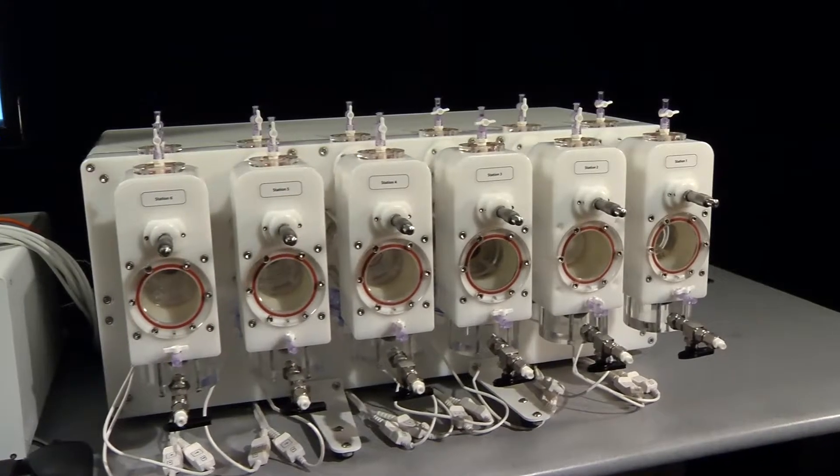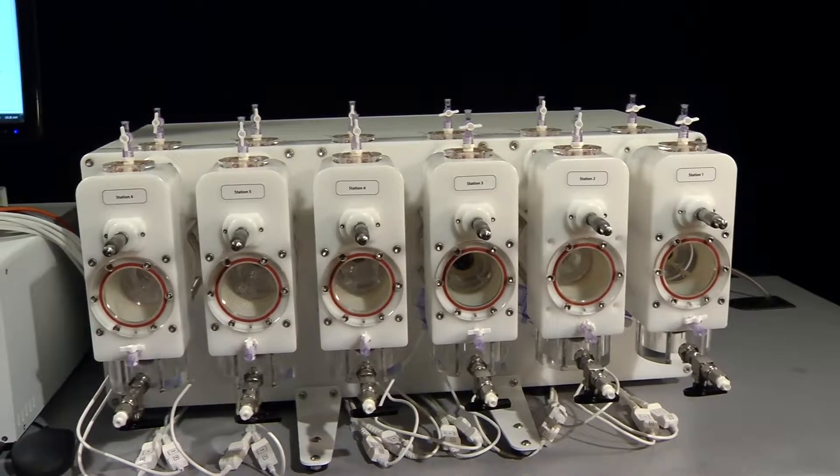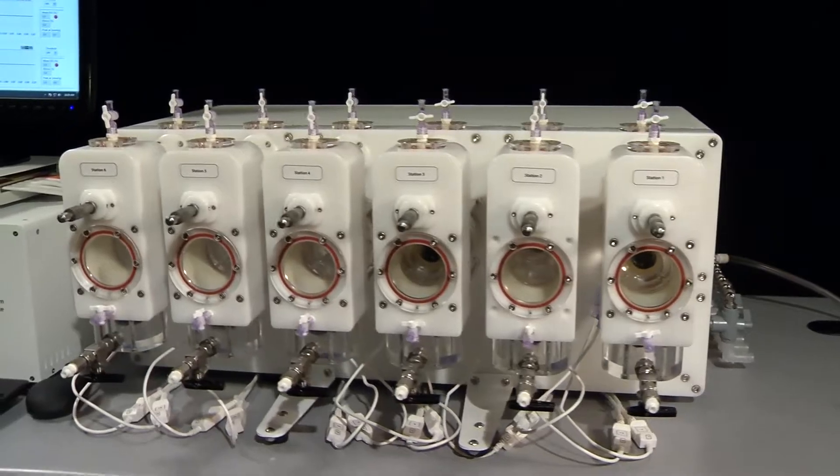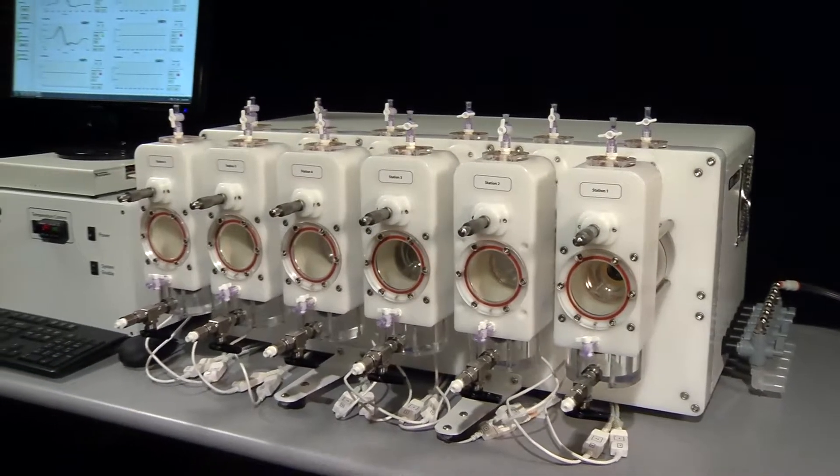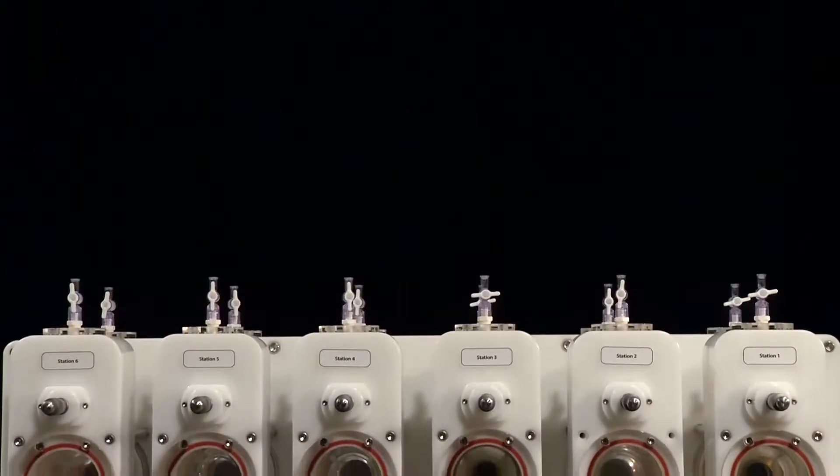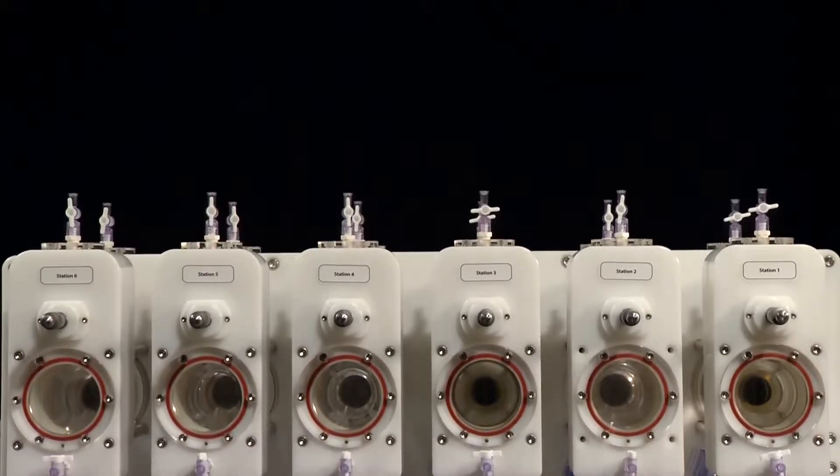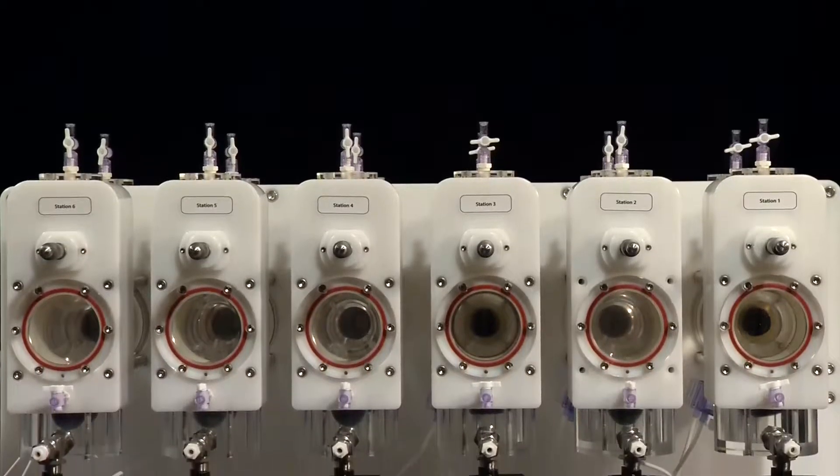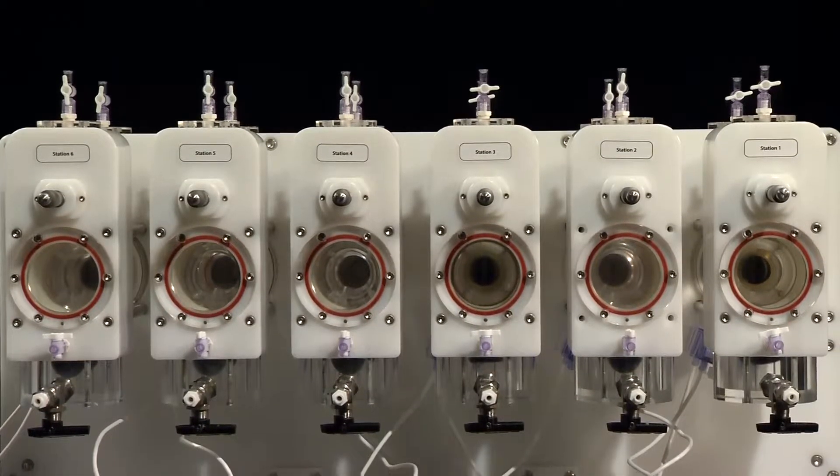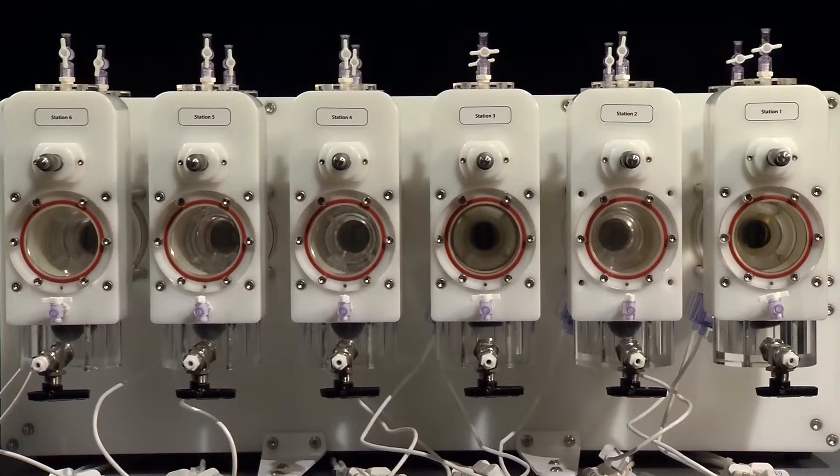Over the past 10 years, BDC has expanded its offerings beyond device testing services to also include test equipment, silicone vessels, and anatomical solutions. Adhering to the highest standards, BDC delivers industry-leading support through each of our divisions to all of our domestic and international clients.